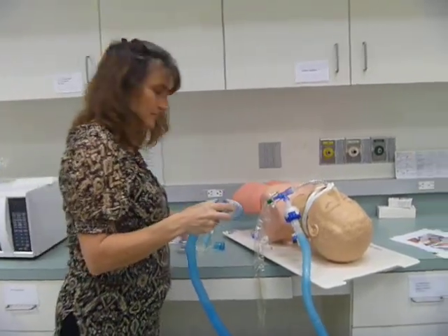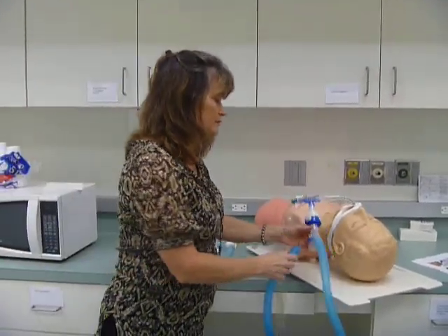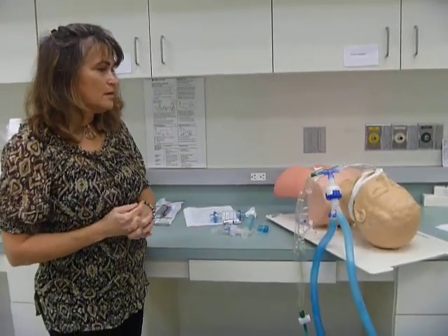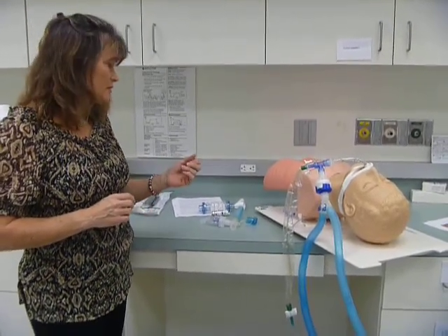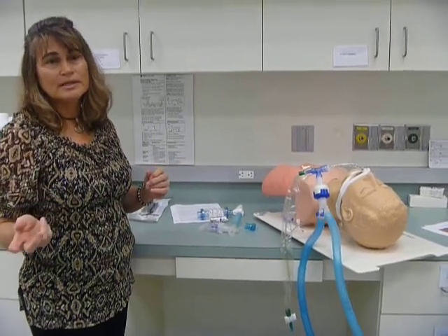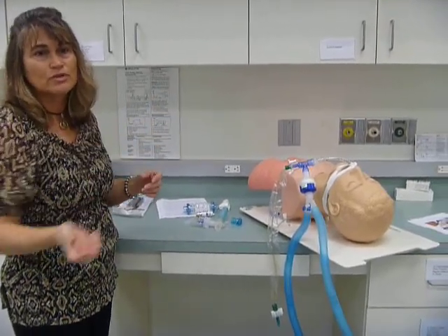Why would you use this instead of just a nebulizer to deliver the medication? Wouldn't it be easier to just use the nebulizer? That way you don't have to sit there and push the little canister. The nebulizer is wasteful because it's nebulizing during exhalation. So the patient's not even breathing in, and all this nebulized medicine is just going right through to the exhalation port.